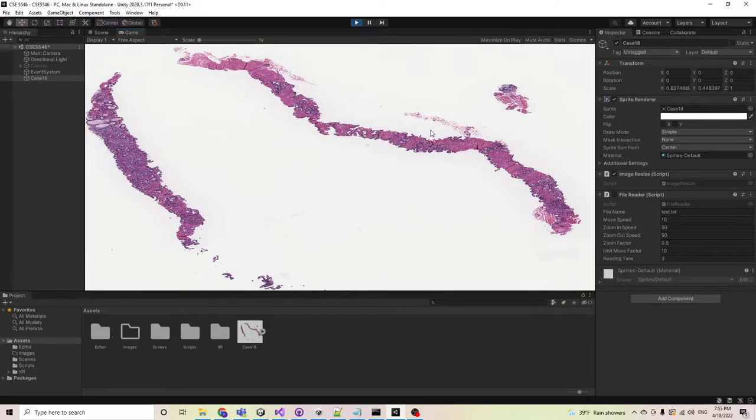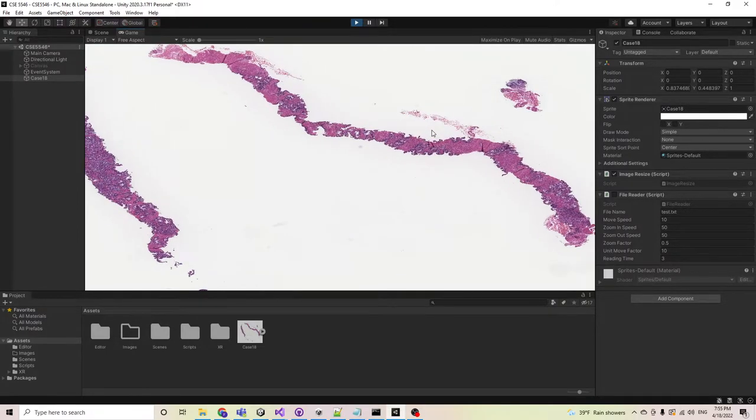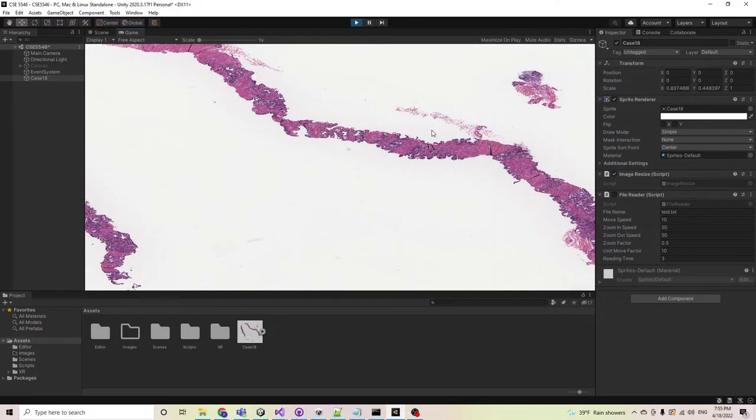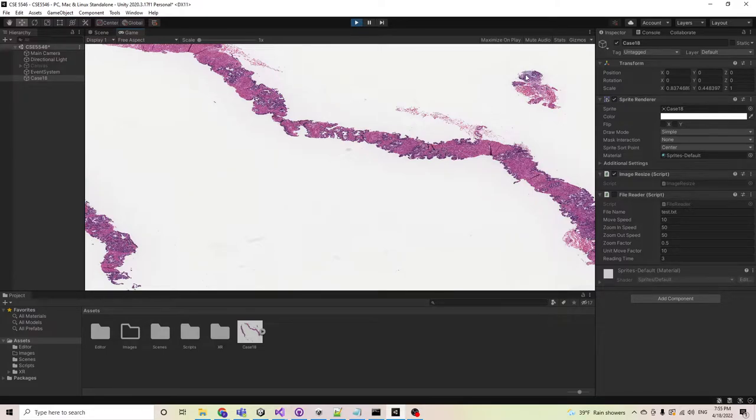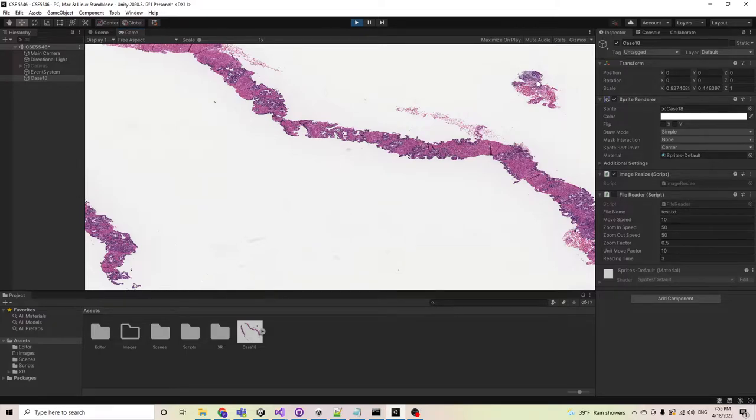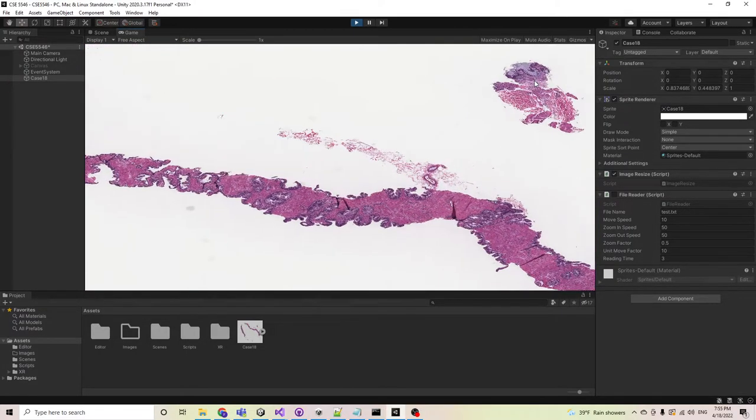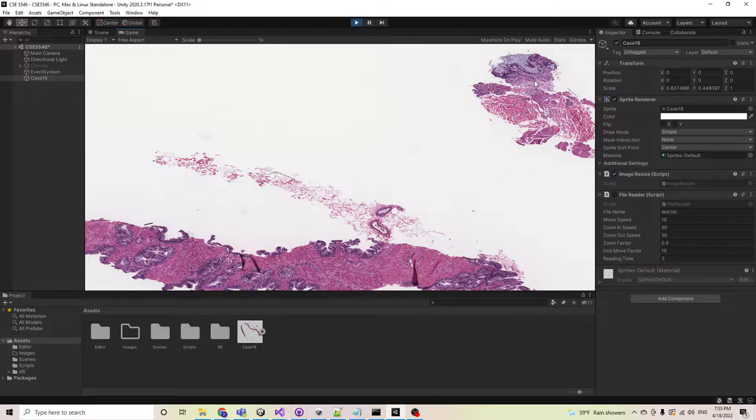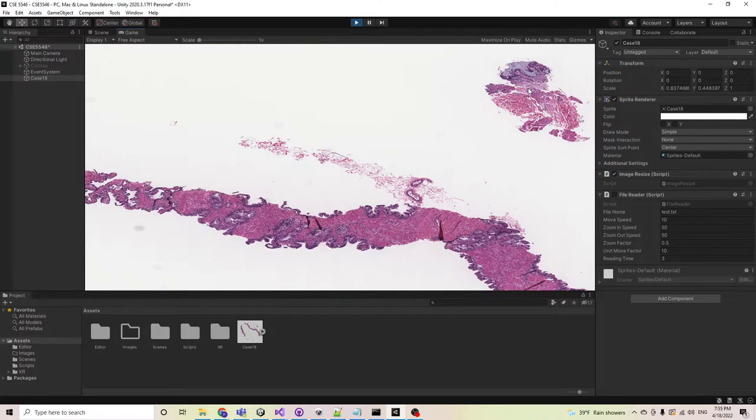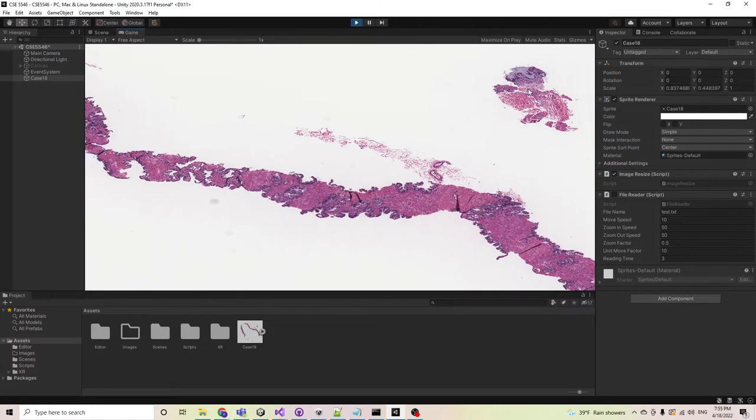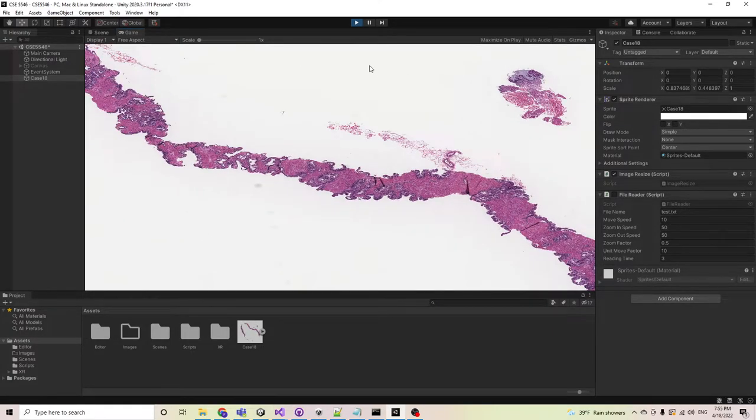I'm zooming to my mouse position on the upper right. If I want to see this part of the image, I could just move my mouse here and then zoom into this area. This area is zooming. Also, I could use the mouse wheel to zoom out.